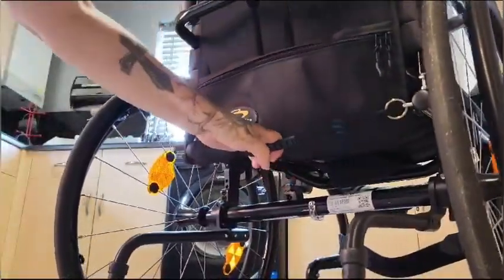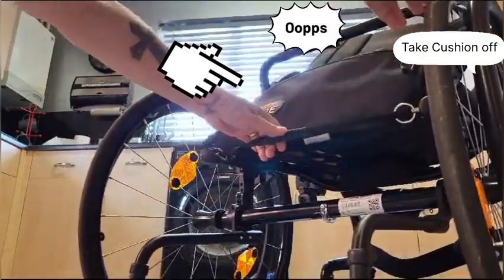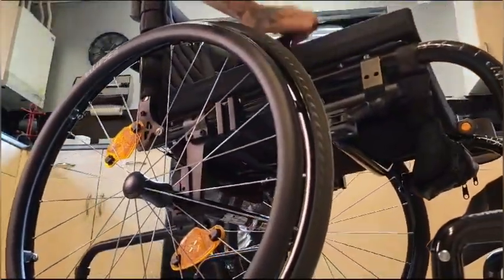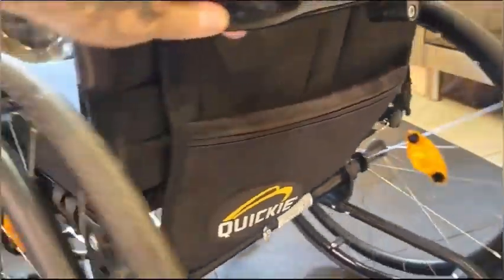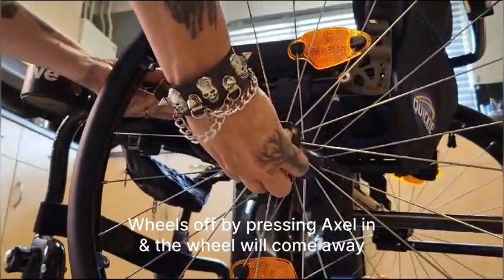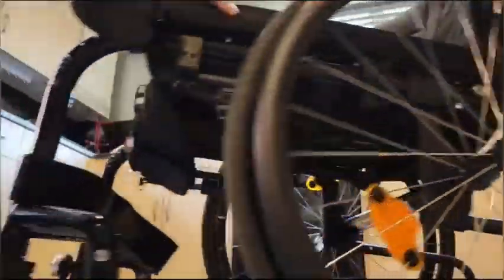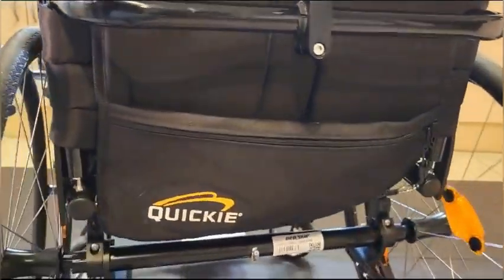To pack it away, you pull the cord and the seat goes back like that. You push it forward and it fixes back on, then you put the headrest back on. As you know, you can take all the wheels off as well. I just wanted to show you the seat — this little cord, you pull it and push it back, easy as that.